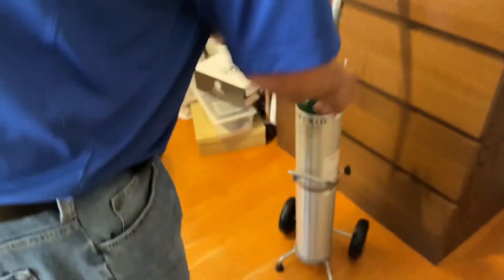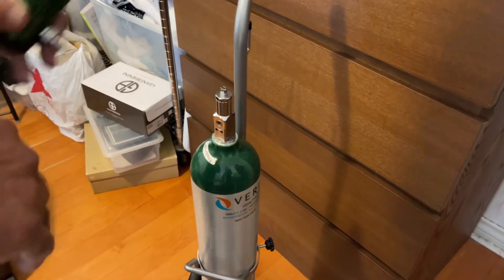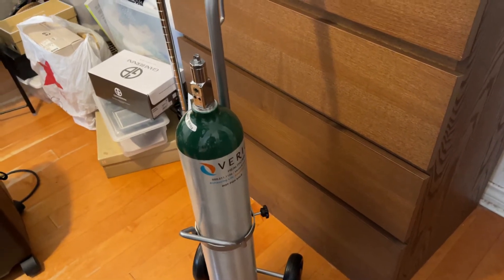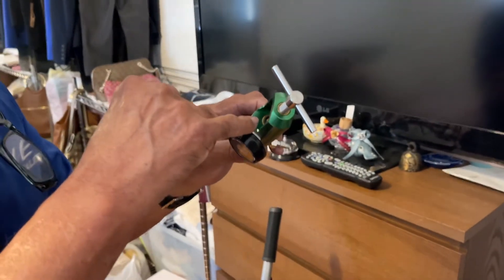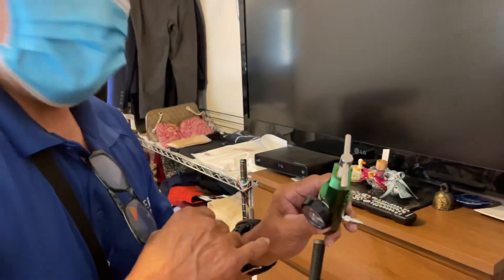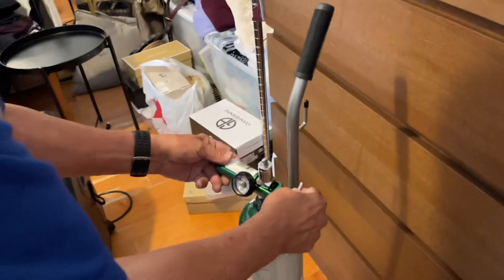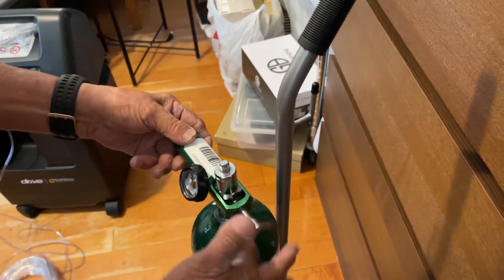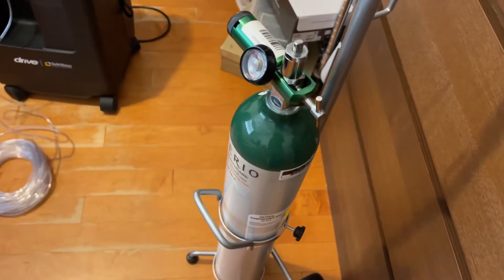This will last four hours. See the two pins? That's where you're going to match it up. You have a washer in that bag as well — sometimes the washer gets flat or worn out. If everything's connected correctly and it still leaks, that washer needs to be replaced. Take it down slowly, go up, watch how it goes in, then tighten it — give it a good snug, make sure the two pins match up right.